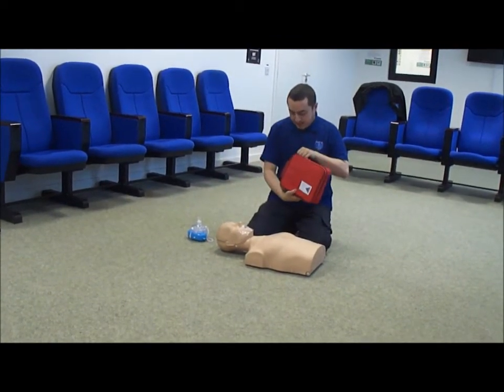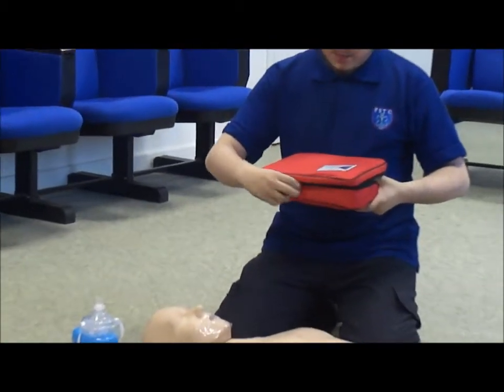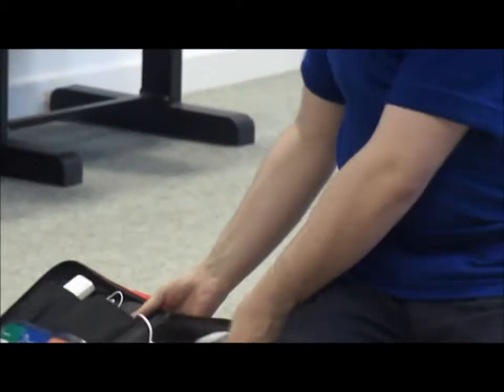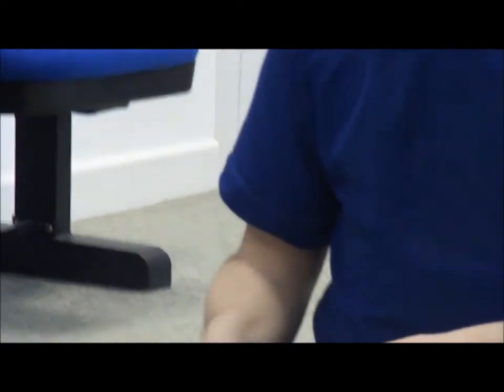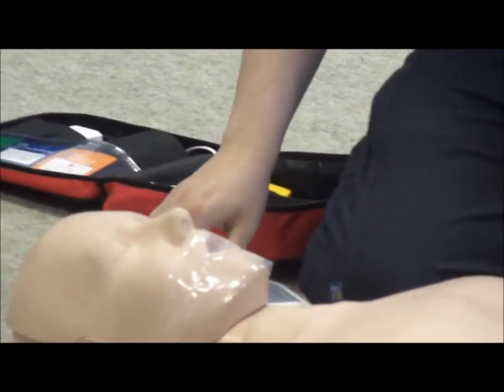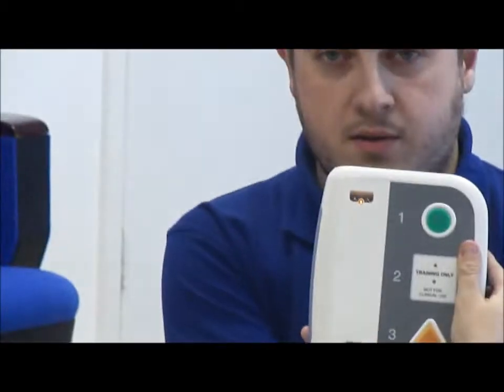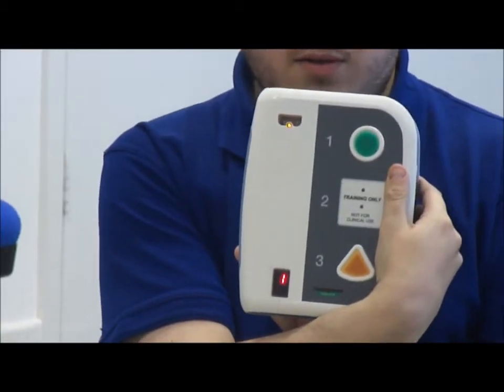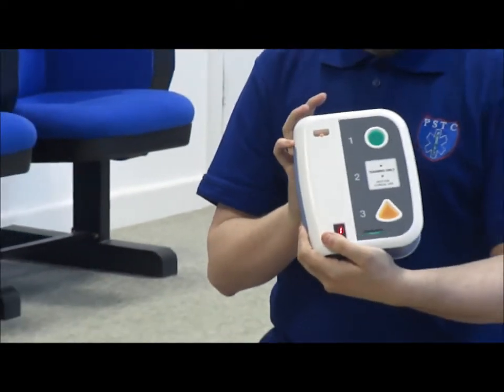So this is an AED, or an automated external defibrillator. We will immediately take out the defib. We'll put the defib between our knee and the patient's head, so we're in good control of the defibrillator. And we turn on the machine. Apply pads to patient's bare chest. Plug in pads connector. As you can see, there's a flashing light. It's talking to me, it's telling me what I need to do.